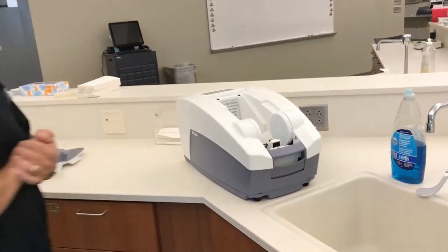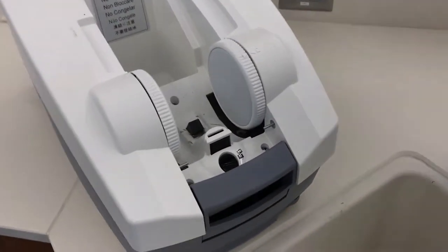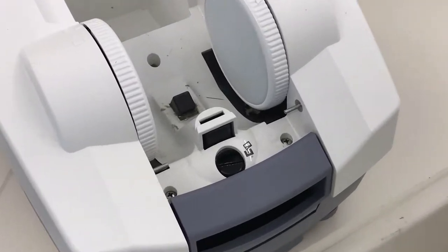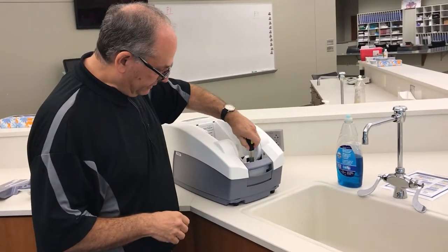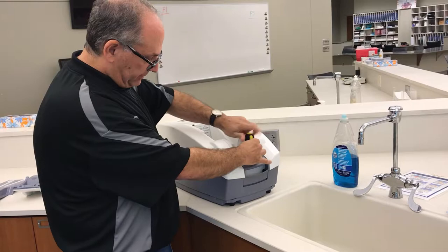Now there's a big black screw that needs to be unscrewed — that's where you add and remove the water. It's a mechanical fitting, so I've got a big flat head screwdriver and I'll twist it a couple of times until it comes out.